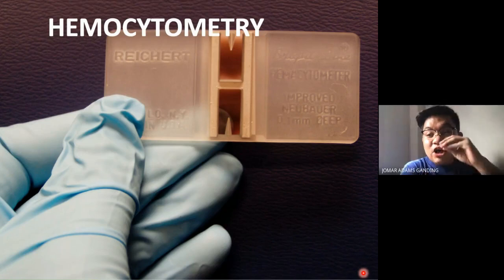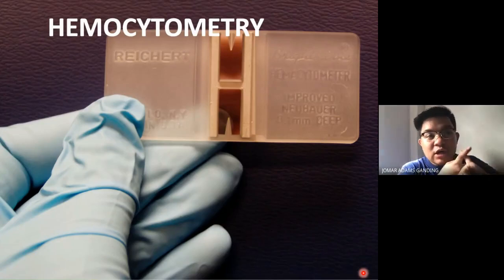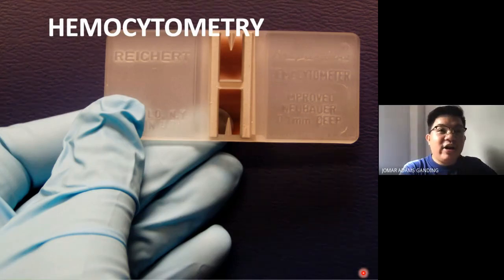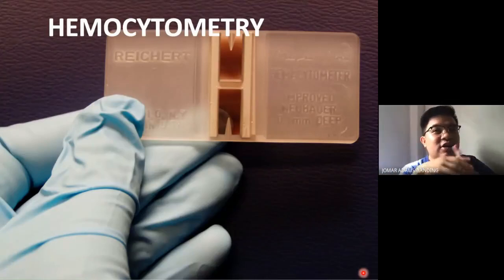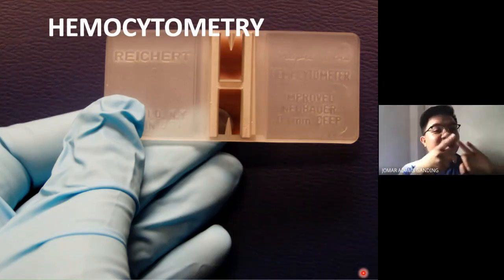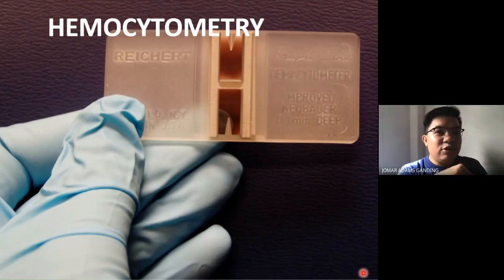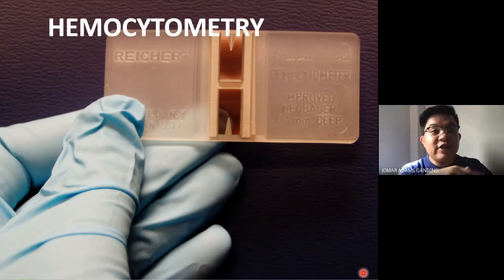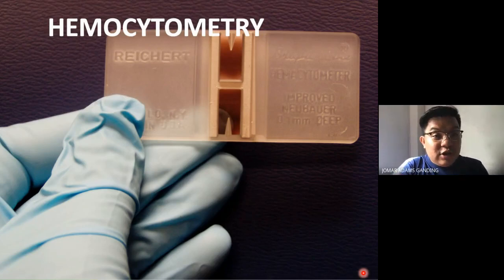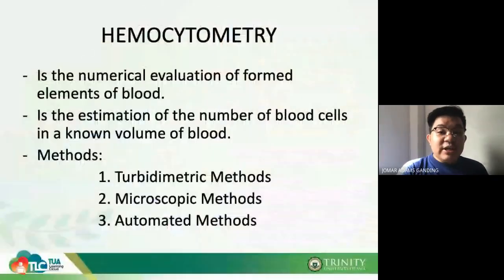For hemocytometry, I want you to remember the following: first, the location — where exactly in the hemocytometer you will count, because there are squares dedicated for RBC and dedicated for WBC. Second, the different pipettes used — the Thoma pipette, WBC pipette, RBC pipette. Third, the different diluting factors for RBC and WBC.